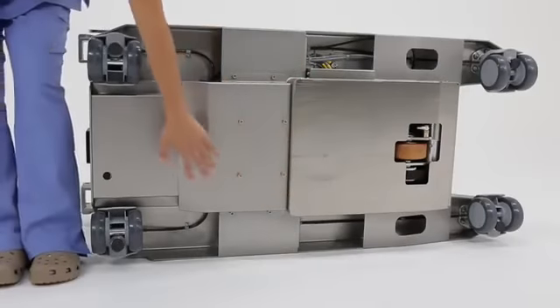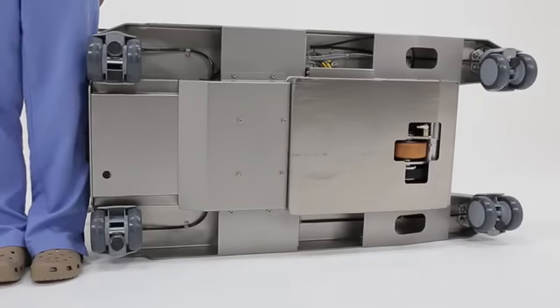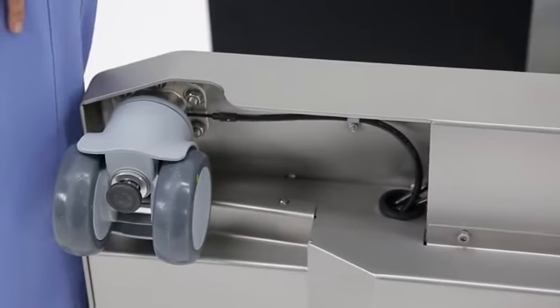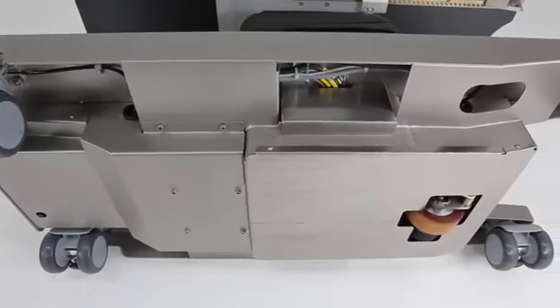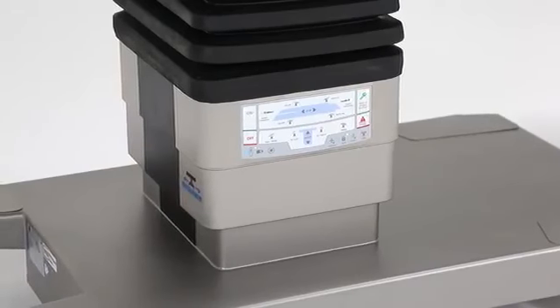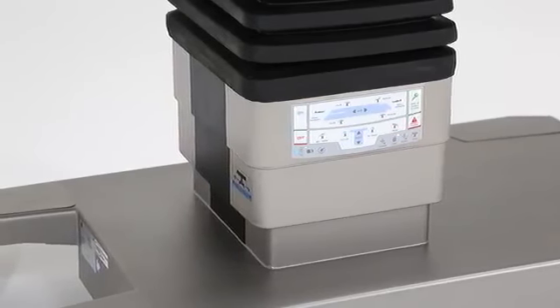The undercarriage of the TruSystem 7000 is sealed, creating a more hygienic surface and reducing exposure to contaminants. The table base has no cover, all the metal you see is structural stainless steel that has been fabricated using Trumpf's patented metal forming technologies. Denting, cracking or breaking the base are virtually impossible, making the TruSystem 7000 another highly reliable member of the Trumpf table family.